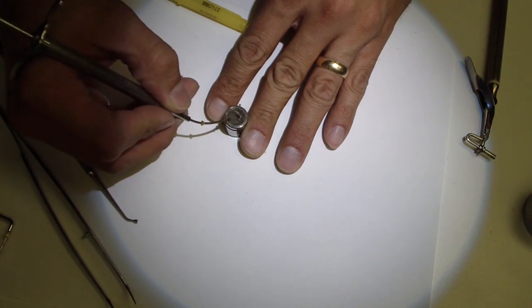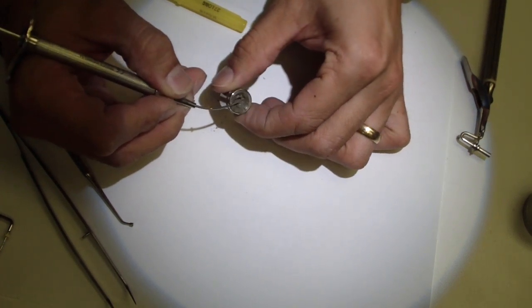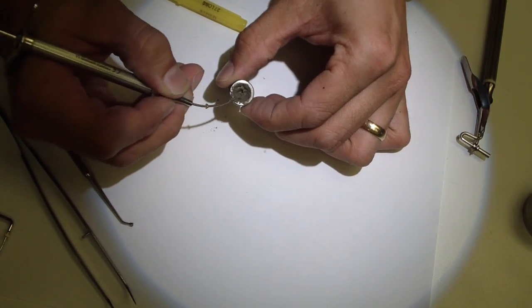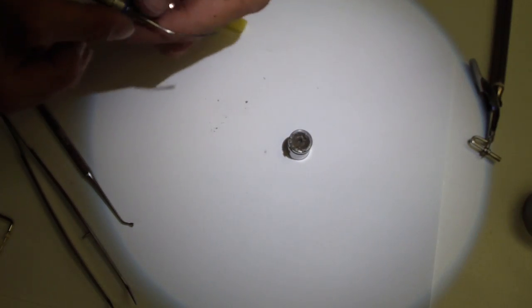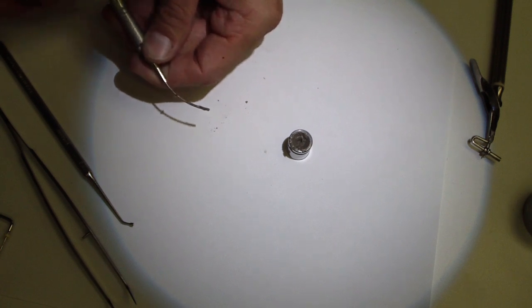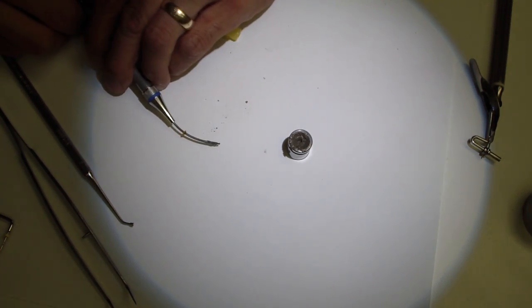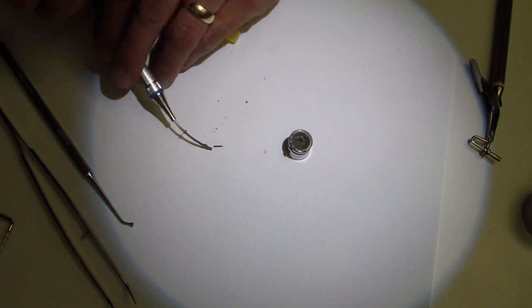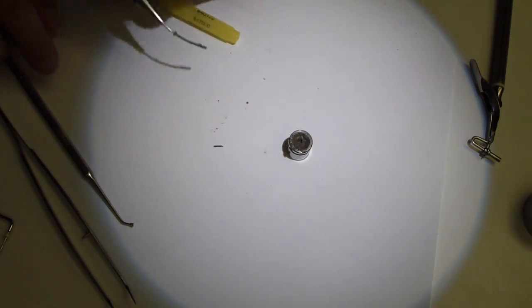Okay, that should be sufficient. I'm trying to save that excess material. And then let's just extrude it on the paper. Yeah, it's a little wet. You can see how now the paper's absorbed it. It was shiny when it came out.